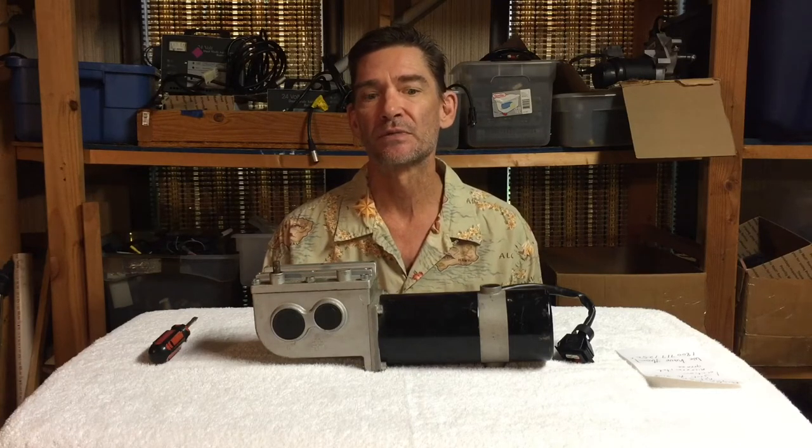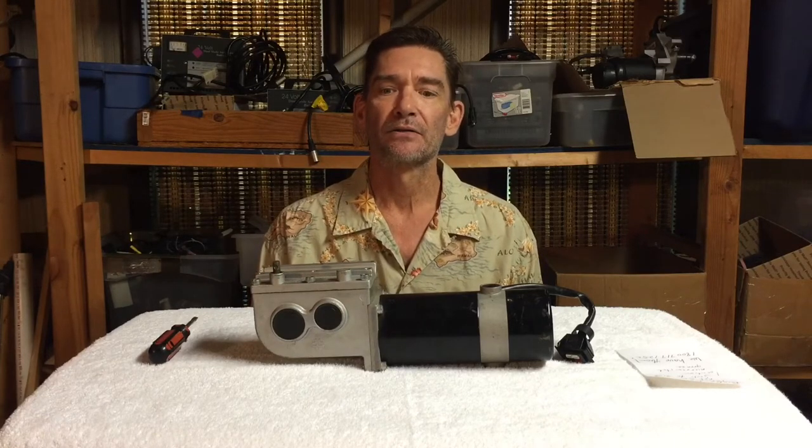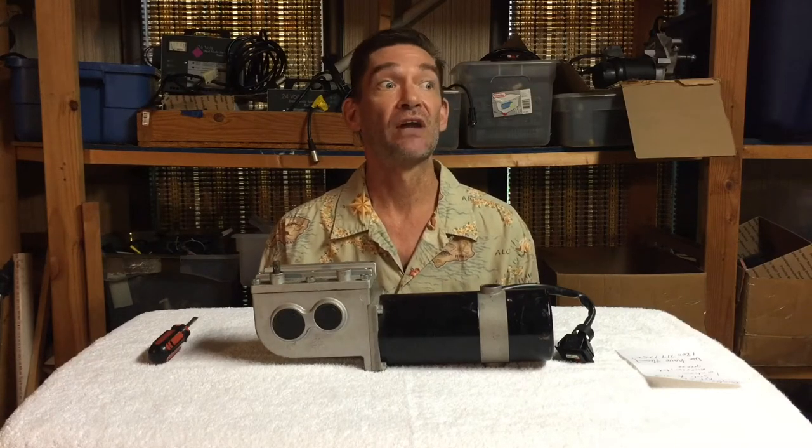The reason why we should do a video about brakes and brushes is because sometimes you get intermittent problems on your chair where you'll start it up and it'll start up fine, then you'll go, stop, turn it off, go to start it back up and it starts fine. You do that eight times in a row and then the ninth time when you go to start it up, it faults out, gives you a flash code, and says that it's one of the motors.